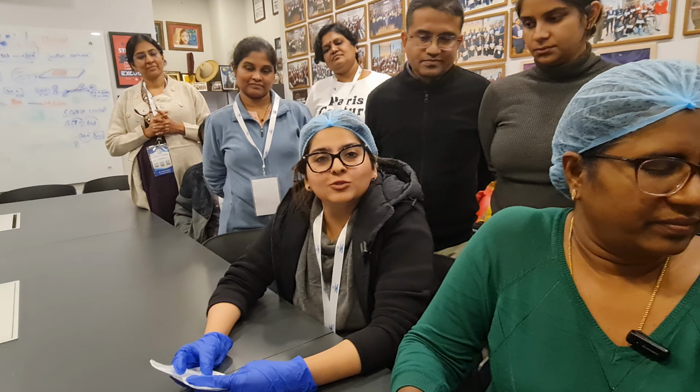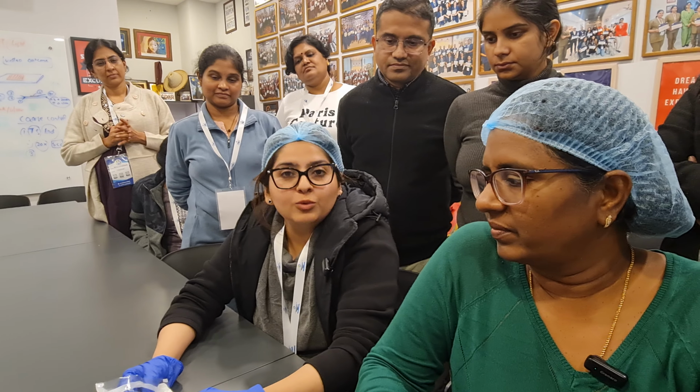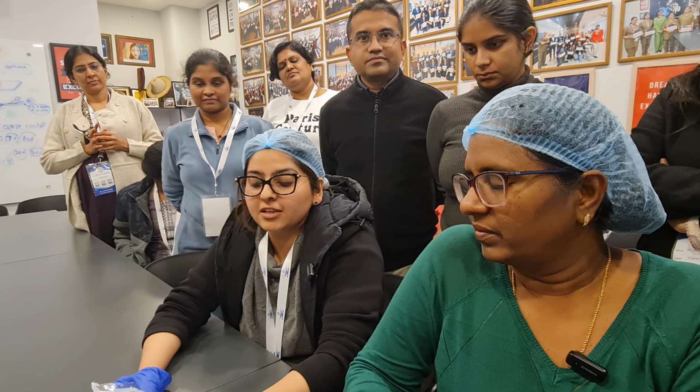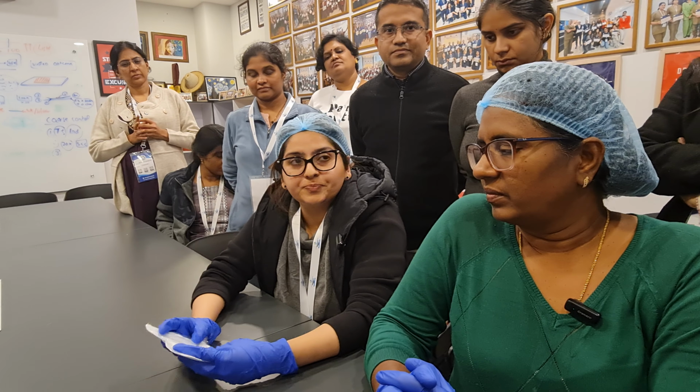I'm Dr. Sumita Malhotra from Muzaffarnagar, and we are attending course 2 under Dr. Talwar. Today we are learning about microfluidics by sperm sorting method.